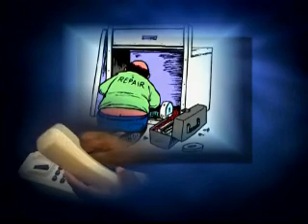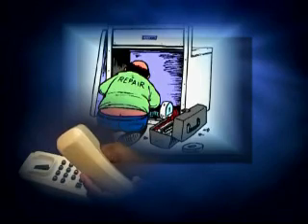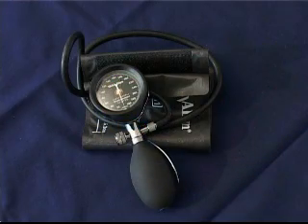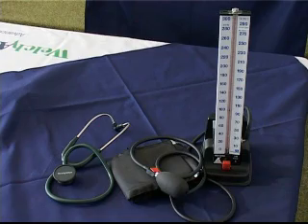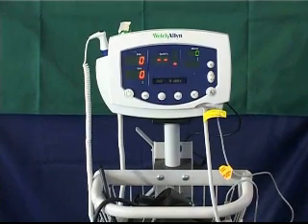If the fault cannot be rectified after these checks, the unit should be referred to a suitably qualified person for further inspection. Remember, all blood pressure devices — whether there is visible damage or not — should be checked and calibrated at least once a year by suitably qualified personnel.